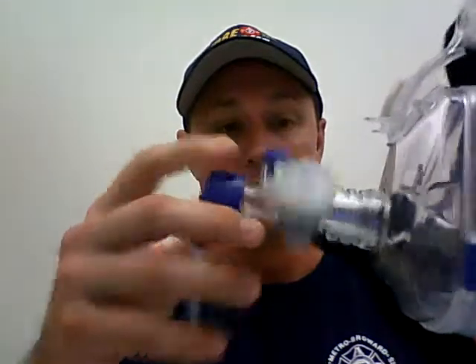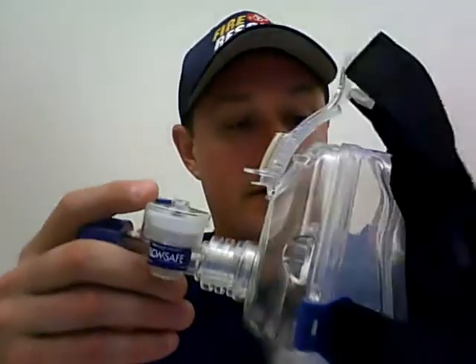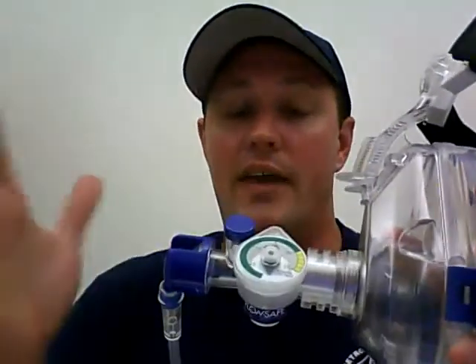I have a CPAP here. I'm going to show you, see if I can put it in the video here. This is one of the masks that we have. It's got this device. You're going to connect it here. In between here, I don't have it with me, but you could put a container that you can put medication in, so somebody who's breathing in the air can also breathe in that medication. For instance, you can use albuterol, Atrovent, or a normal saline, for instance, to help get some fluid down in there if they need that.